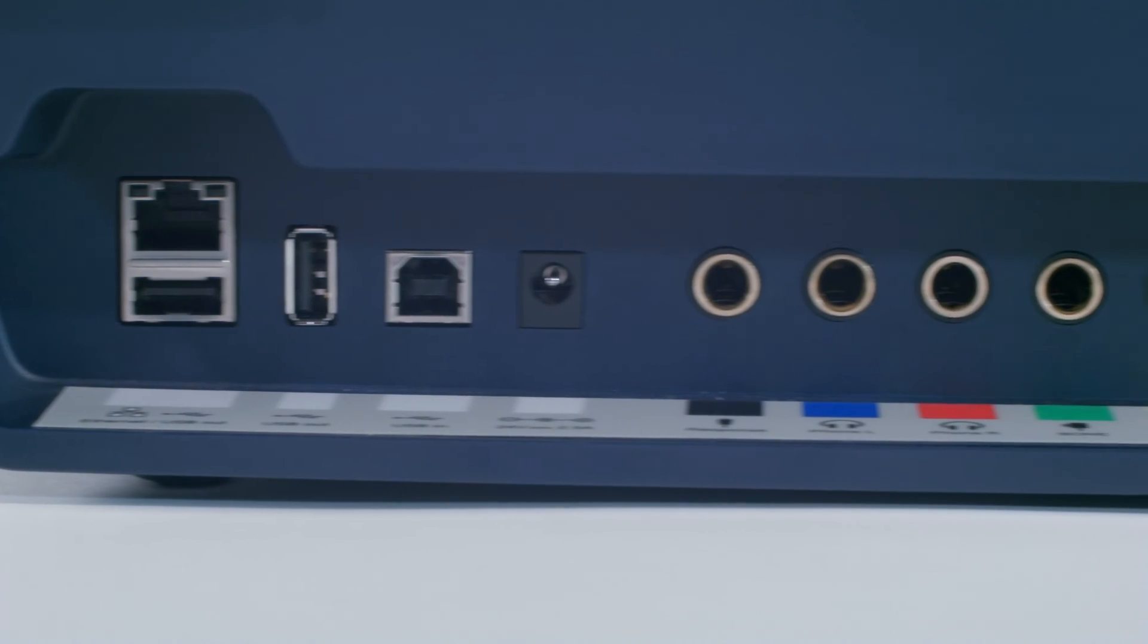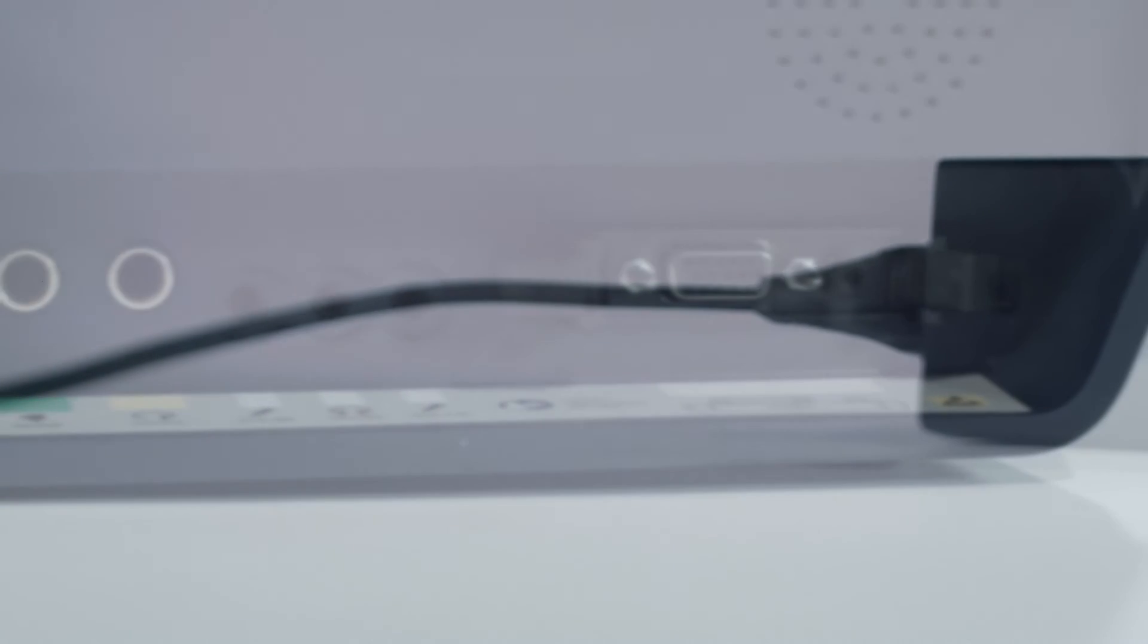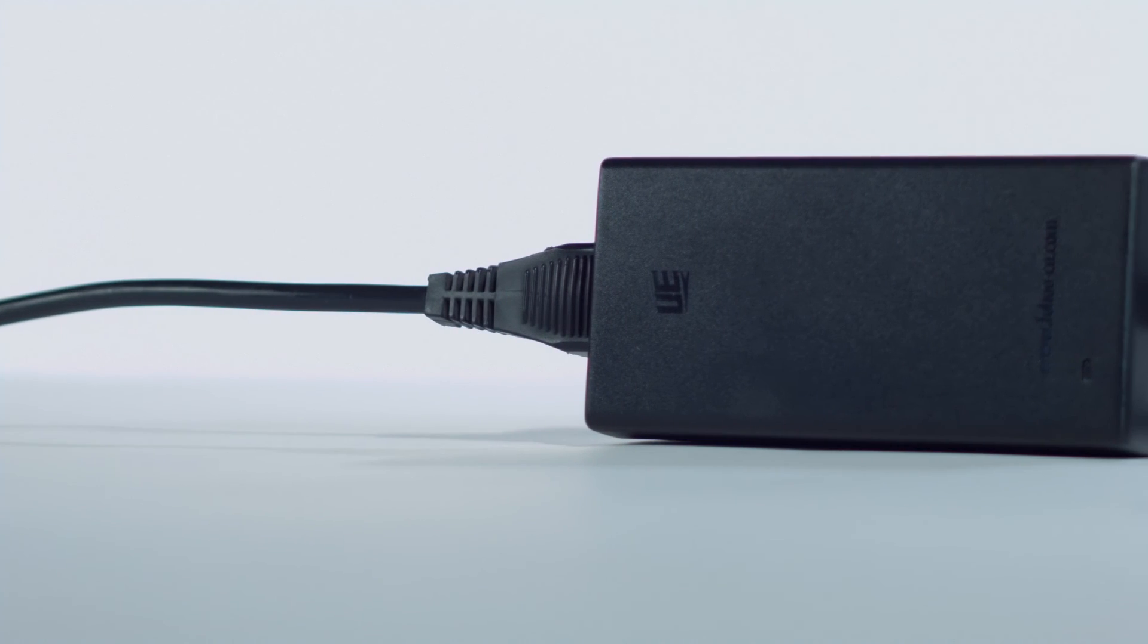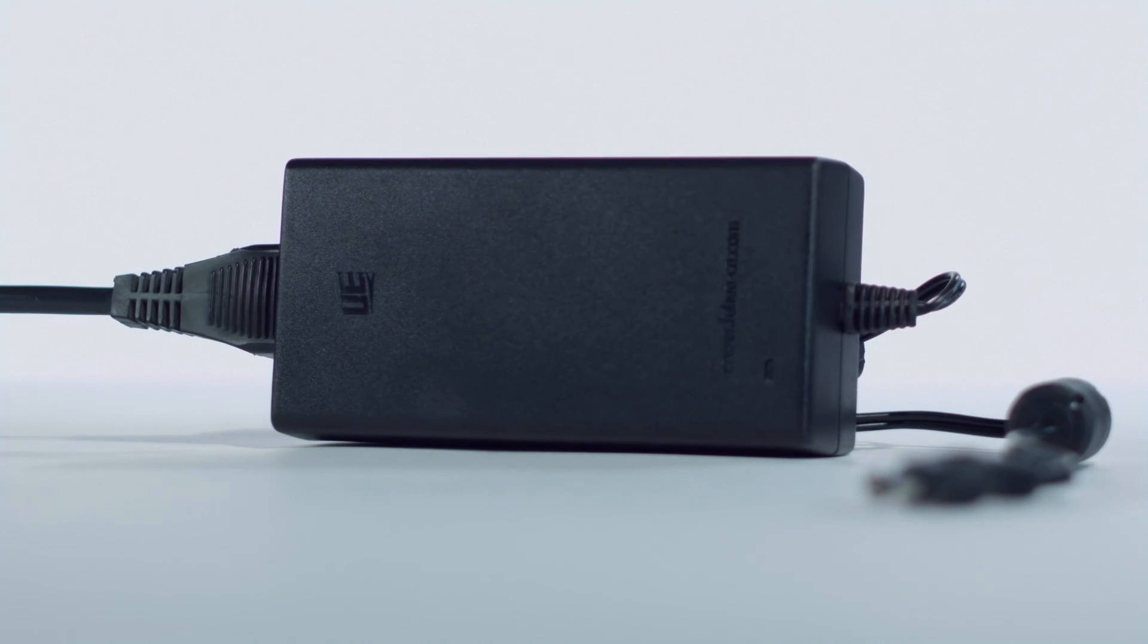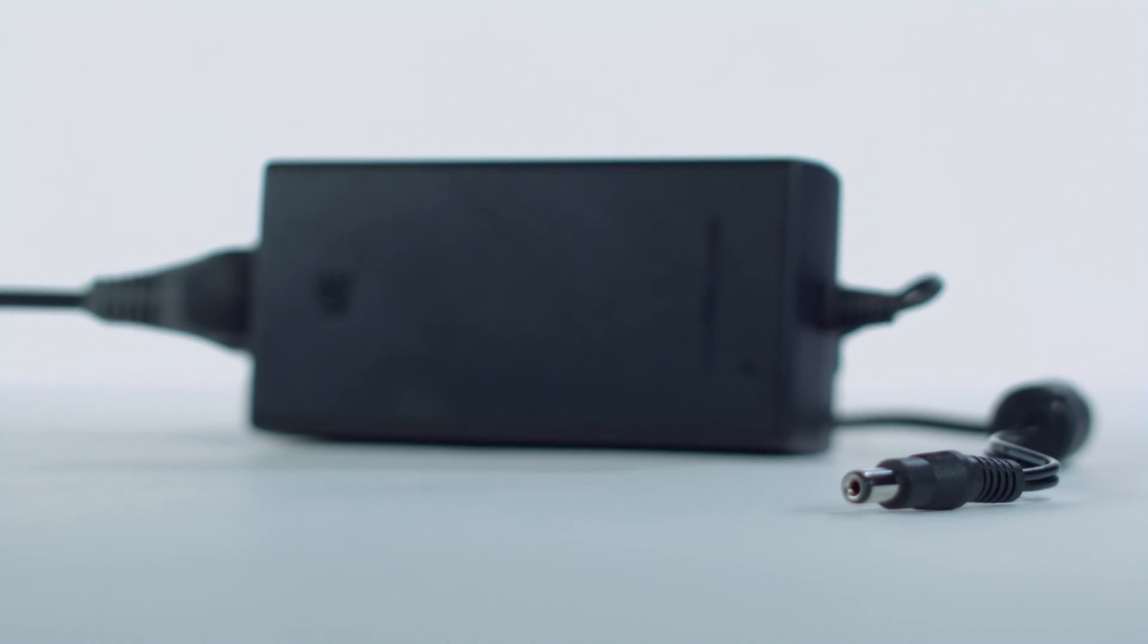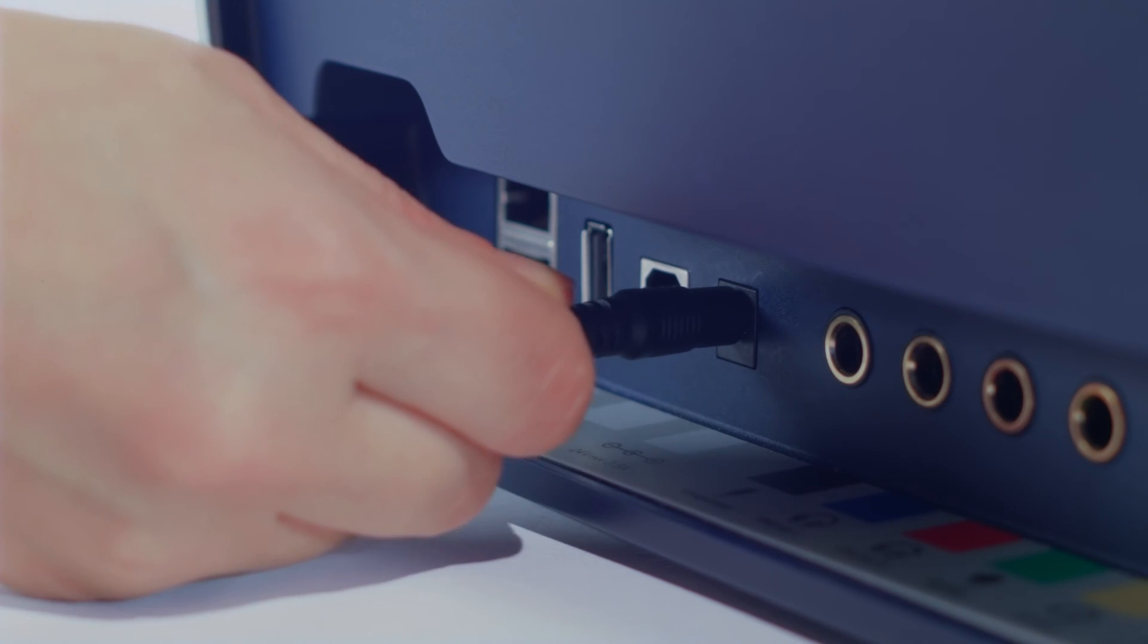Locate the color-coded jacks on the back of the instrument to start the setup of your device. First, take the power supply and connect it to the back of the instrument.